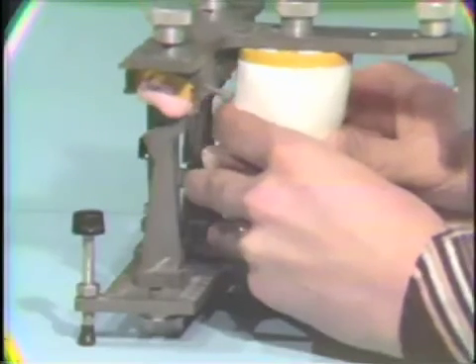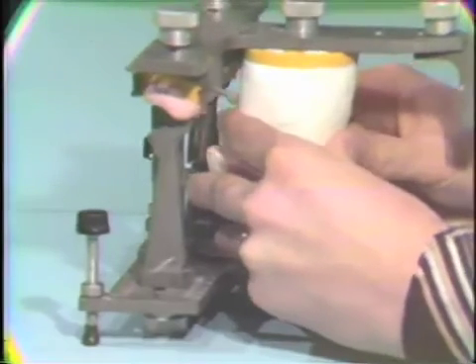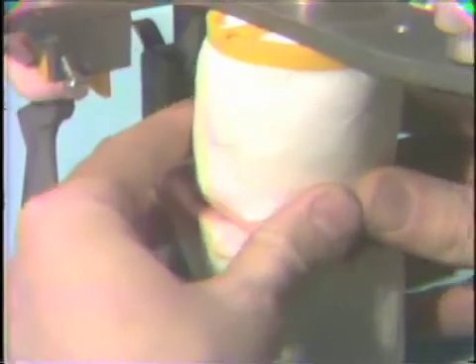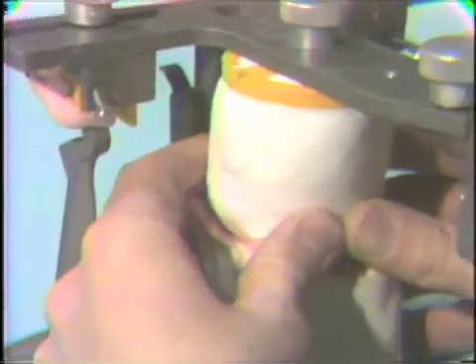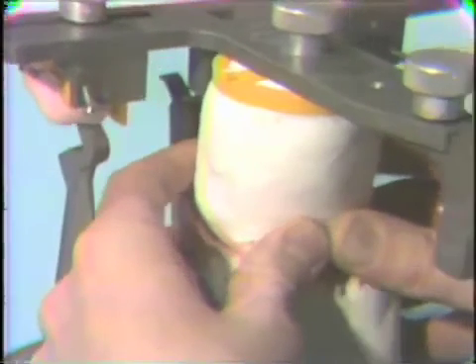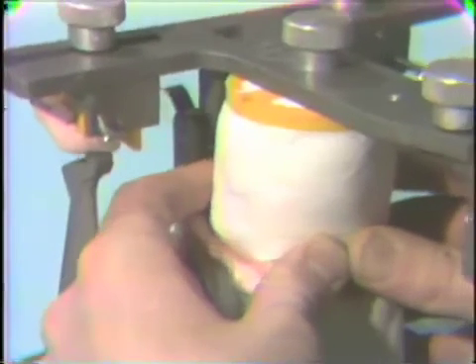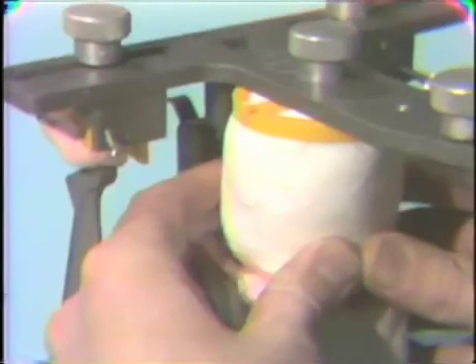Also, as the acrylic starts to set up, and also while we're doing this, it's very difficult to visualize whether or not the condylar ball is in contact with our setting acrylic at all times. So I think in summary, this is just another very potential source for error if we don't use extreme caution in this procedure.